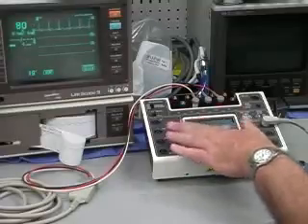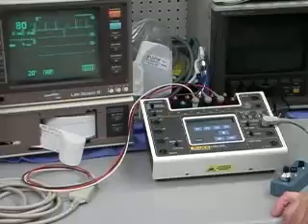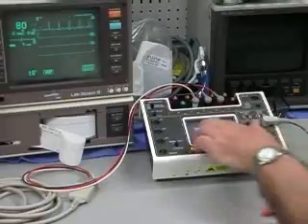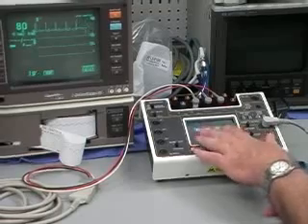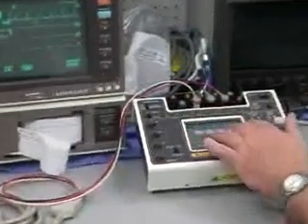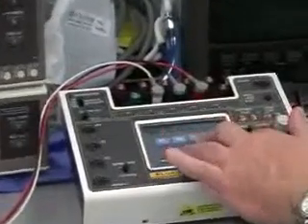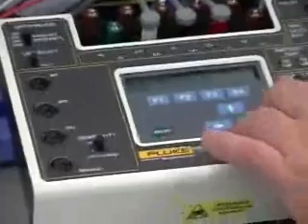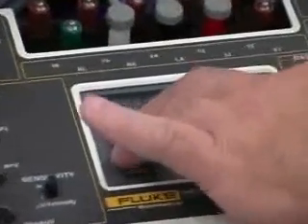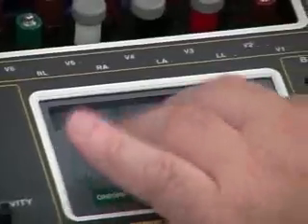Everything you need basically is there. If you're looking at just normal waveforms, we've got the ventilator waveforms, full ranges of rates, and also the sizes of waveforms, the ratios, different apnea conditions. Also for your neonatal mode, it's called shift.